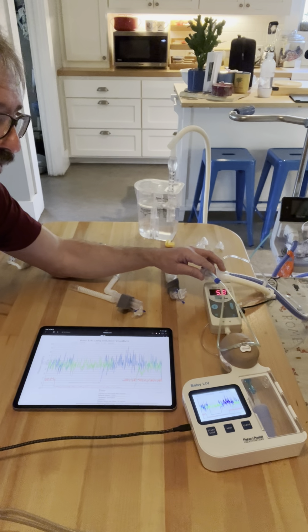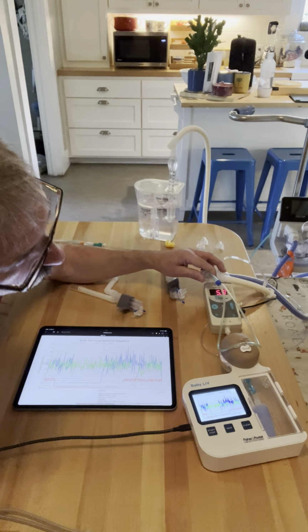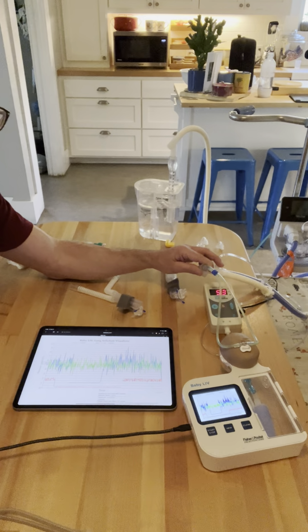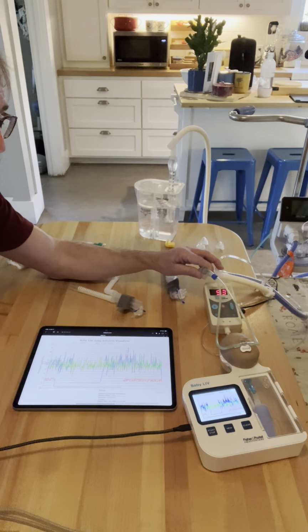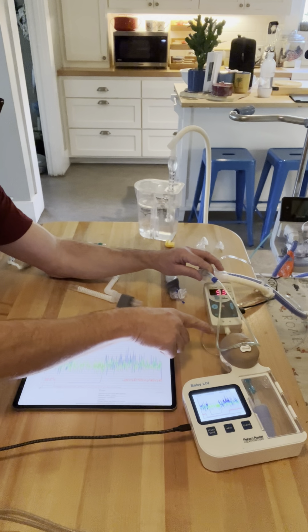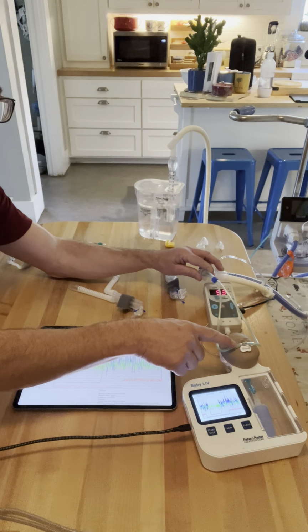The problem is now that we have come in at about 90 to 100%. It's all about percentage of occlusion and errors. So they said, well, why don't we just use 90 to 100% occlusion of the cannula? And the reason why is because the baby cannot exhale against all of that through their nose with the pacifier or a chin strap on. It's just not possible.